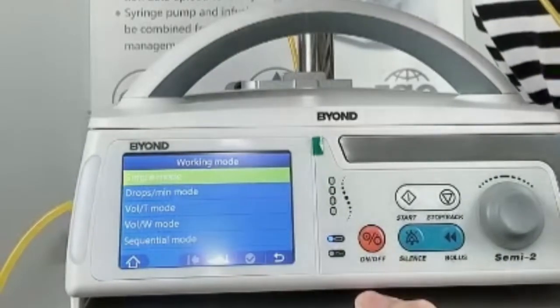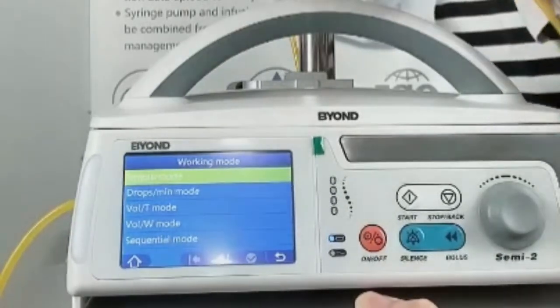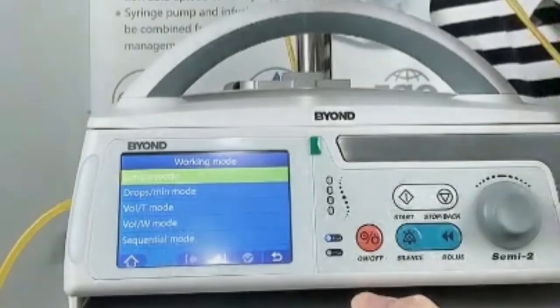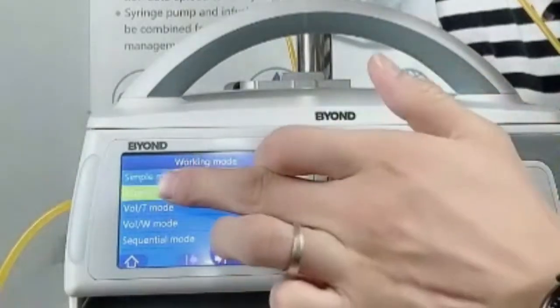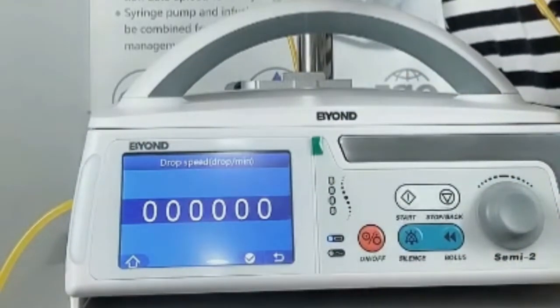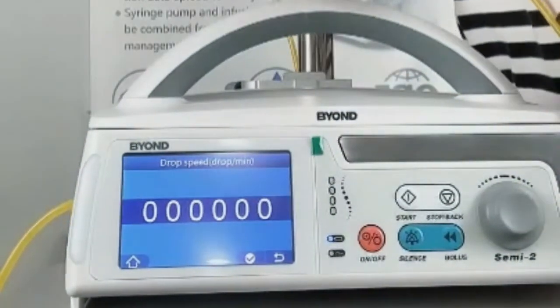The second mode is the drop per minute mode. You can also set the drop according to the requirements.